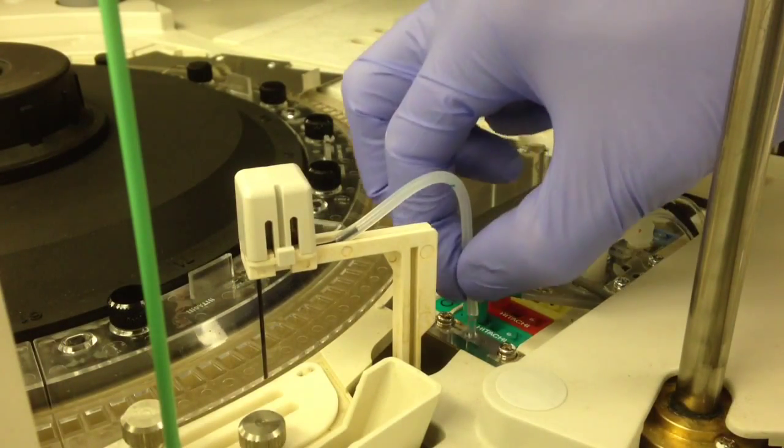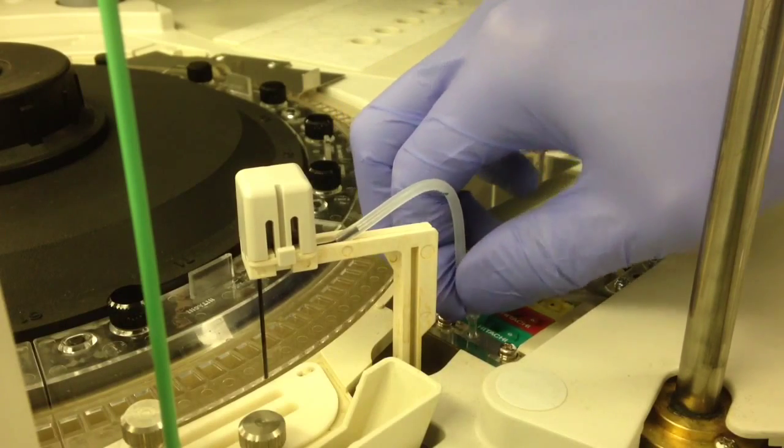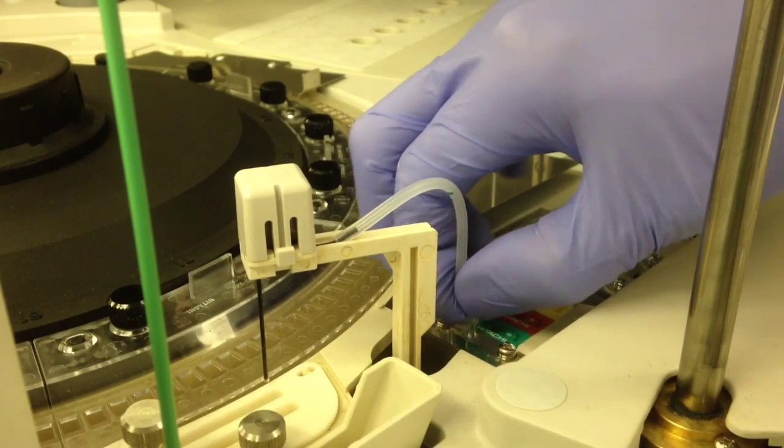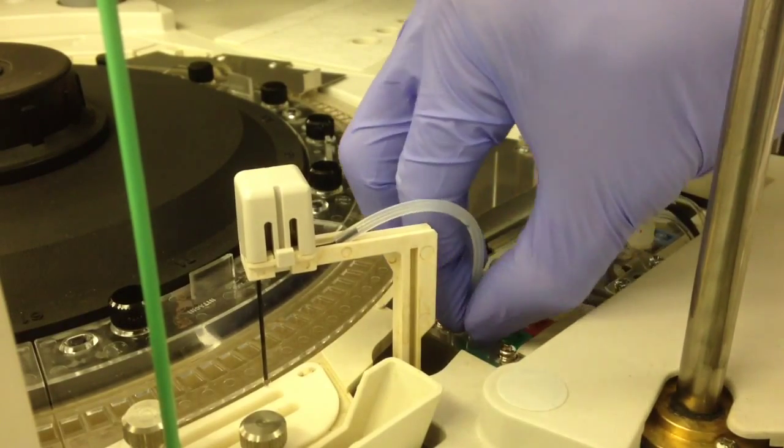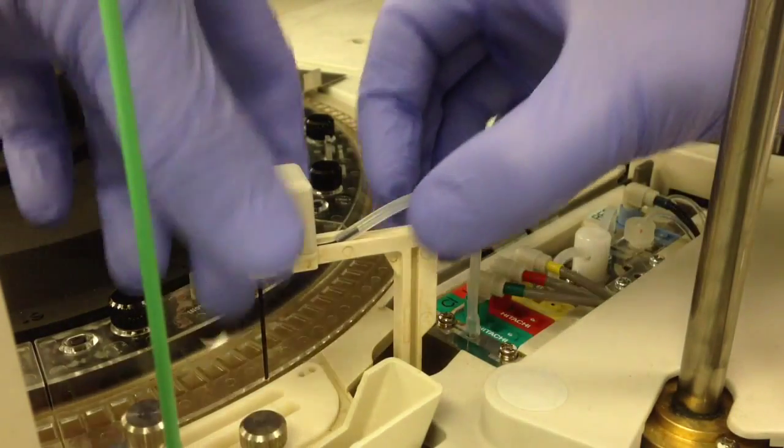Also, make sure the cap of the actual sipper probe itself is properly seated. Or when you try and restart, you might get the sipper probe up down air, which I actually have a video on how to resolve.